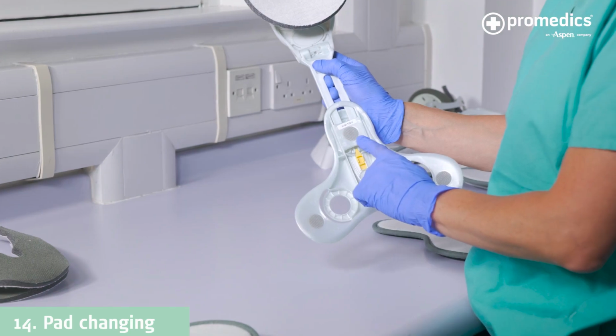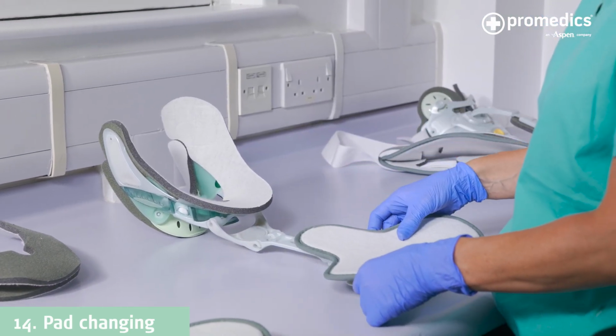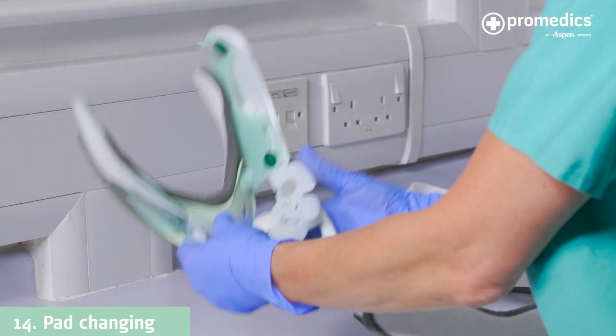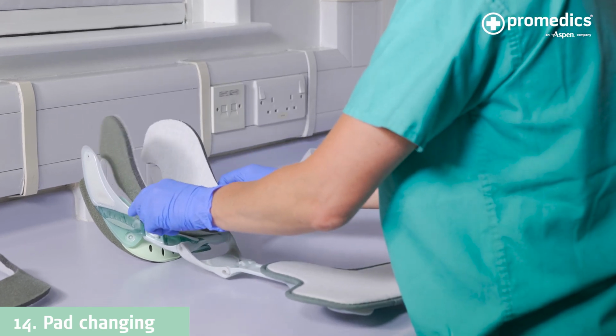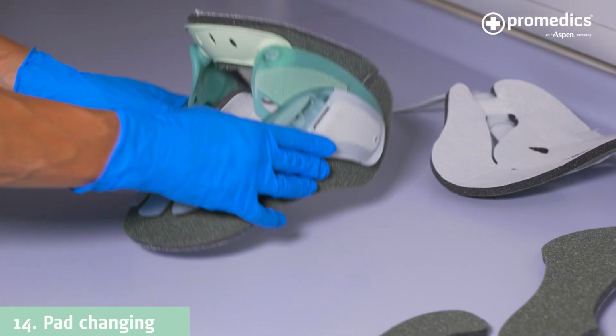There are pads for the front panel, chin piece and back panel. The Vista pads can be removed when soiled and changed for a new clean set. To replace and adjust the pads, the grey-green colour material grips the Velcro dots. The pads must cover all edges of the plastic to avoid touching skin.